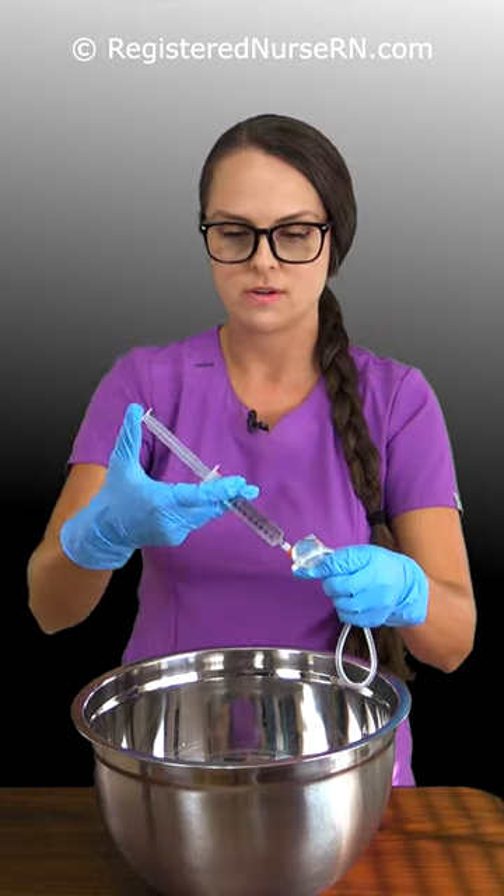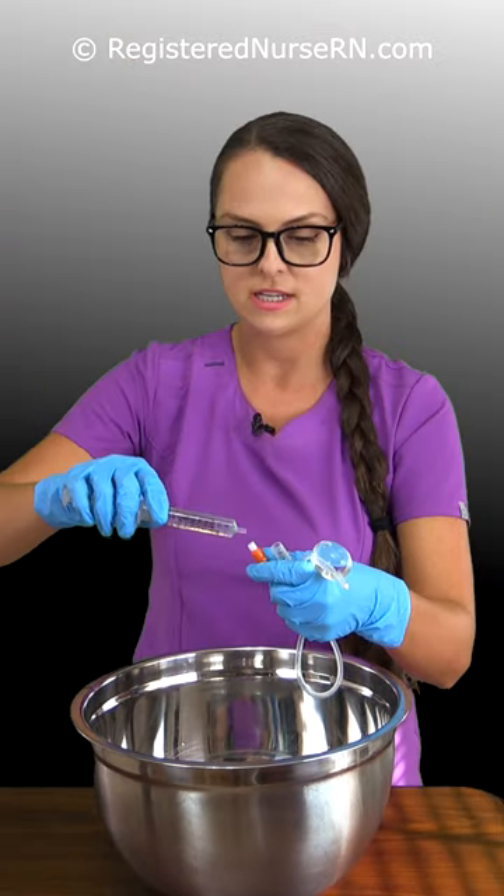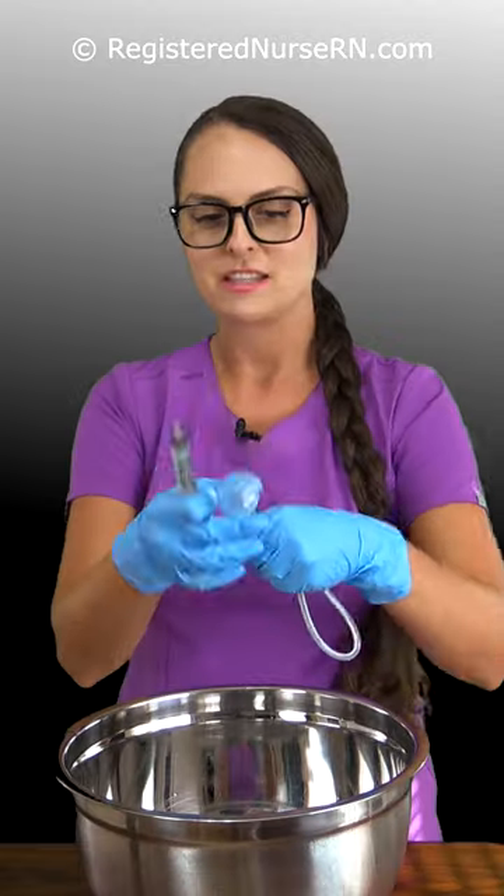So there's 10. Going in another 10, equaling 20. A little hard to push, gotta push a little bit. Another 10, equal 30. That's pretty big.